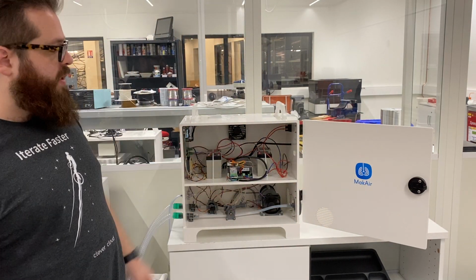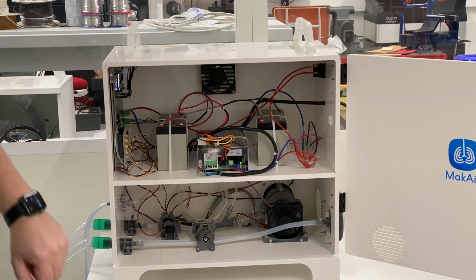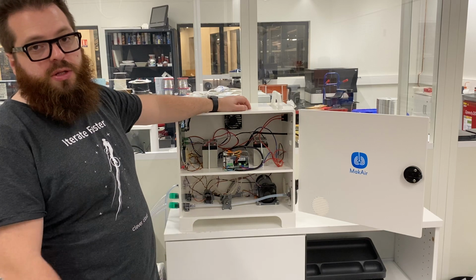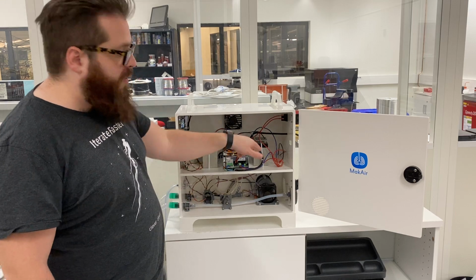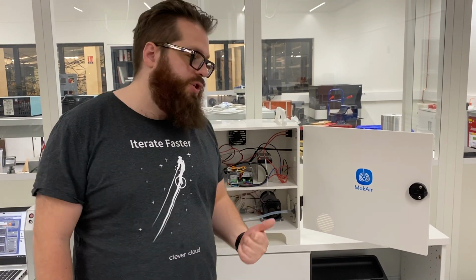So our MakAir is built. MakAir is a very simple design. It's a box, and in the box you will find the electrical power here, the electronic stuff there, and the pneumatic stuff here. The electrical power is simple. You have the electrical regulation, the power supply and what you need to convert the electricity. You have the battery. MakAir has been designed to be used in transportation or emergency situations where you need some electricity, and it has been successfully tested by independent testers for more than 5 hours in real usage.